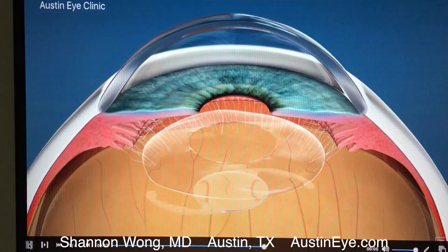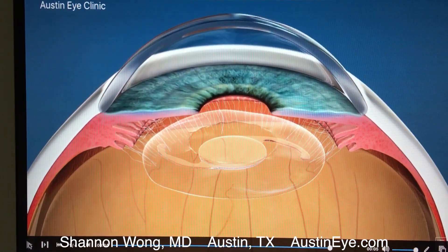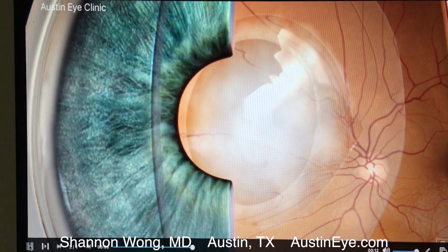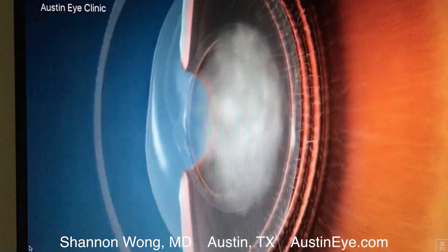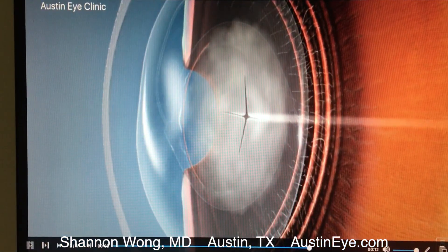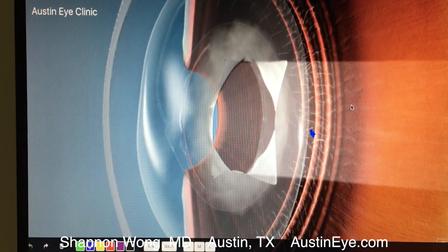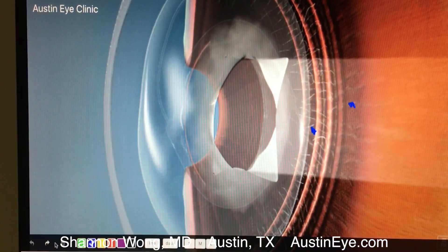Let's illustrate YAG capsulotomy on the computer. We open the capsular membrane during cataract surgery, remove the cataract, and insert a lens implant into the capsular bag. This is an oblique view of the lens implant, showing the cloudy capsule that has formed. We deliver the YAG laser to open the capsule. Quite often, small fragments of the capsule will remain suspended behind the implant.